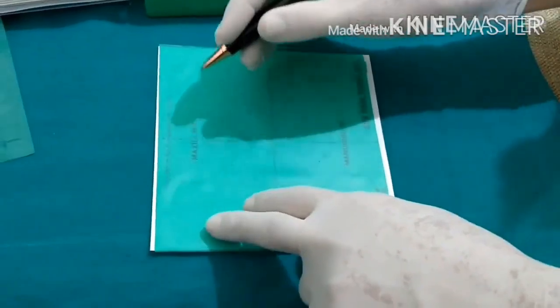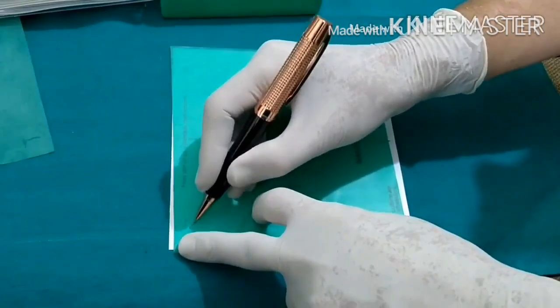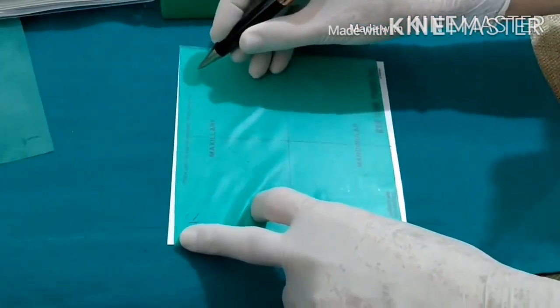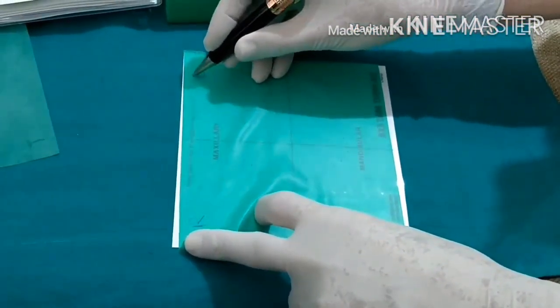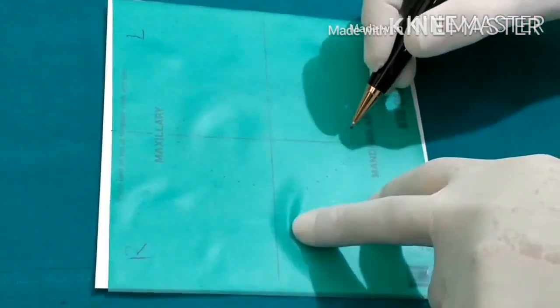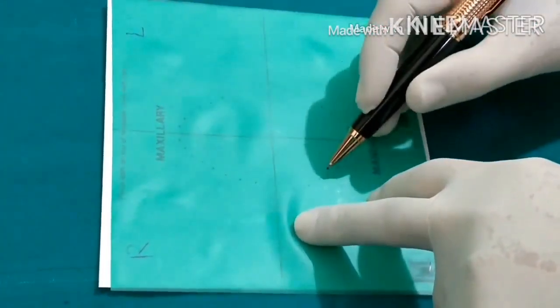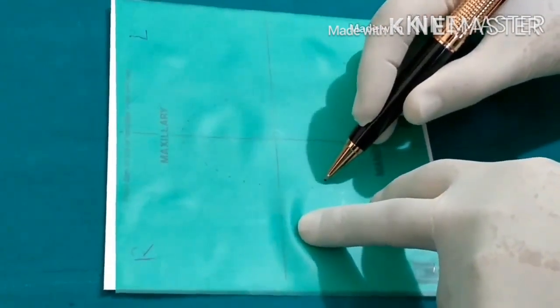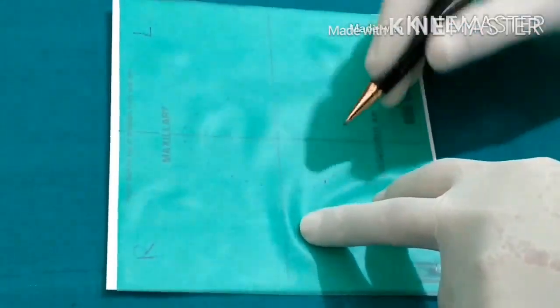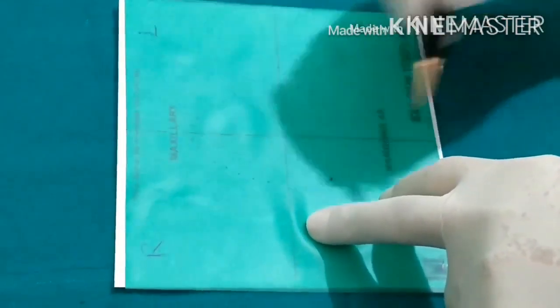In the beginning, mark the right side of the patient on the right and the left side on the left. This automatically tells you that the upper portion will face towards the nose. Let's assume we want to expose the upper right first molar — so we mark it here at the third molar, second molar, and first molar positions.